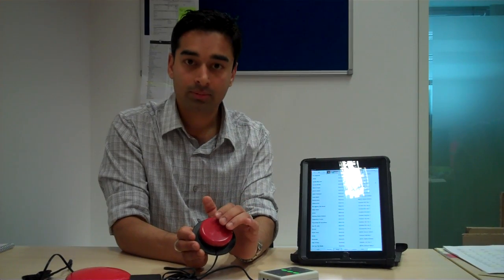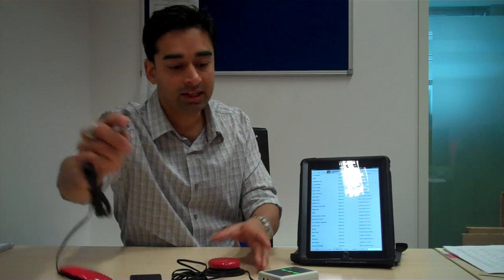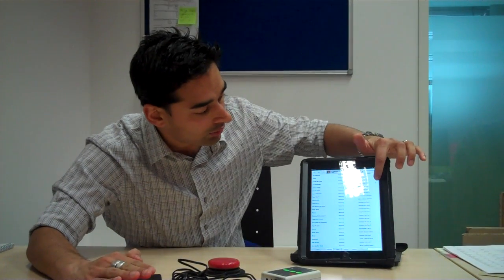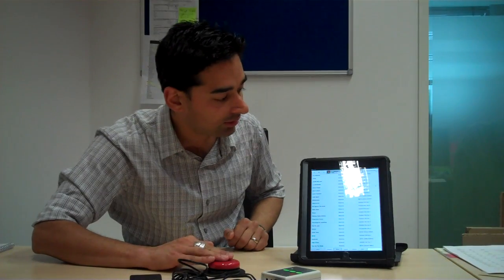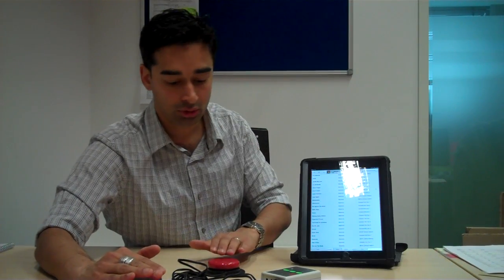Let me show that to you again. There you go. If I click my switch again, it will of course pause it. If I wanted to skip a track, I can plug in another switch here into number two. And as you can see, right over here, it will go on to the next track. If I don't like that track and want to skip it, I can of course go on to the next one as well, and so on and so forth.